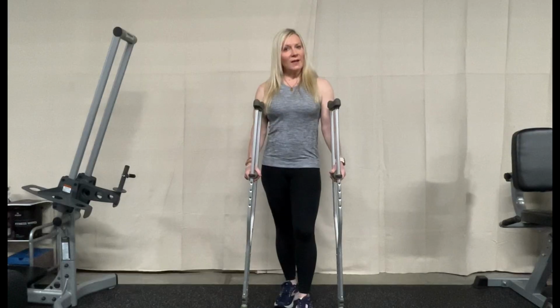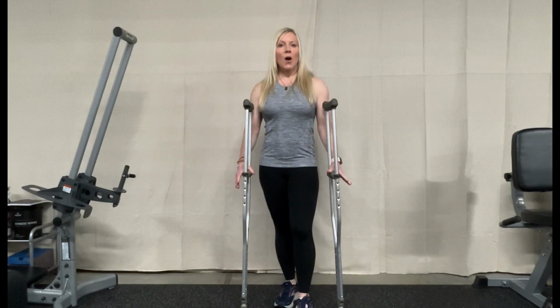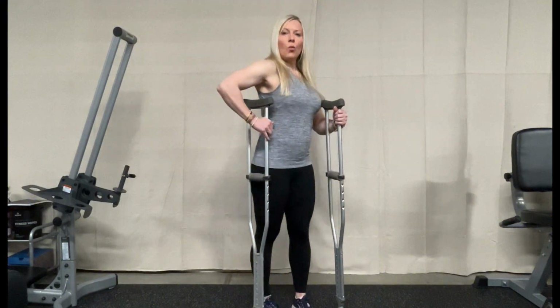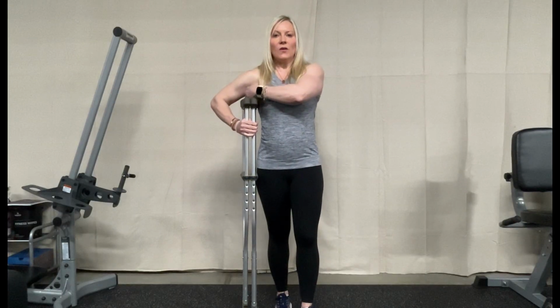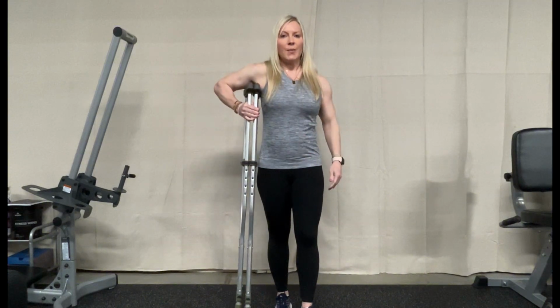The second one I would like to show you is crutches. Again, the proper fitting is so important, in that we want about three fingers width underneath the armpit where the crutches are. It's so important to not put pressure up into the armpit. This can pinch down on your nerves and your blood supply up in the shoulder and through that thoracic area.